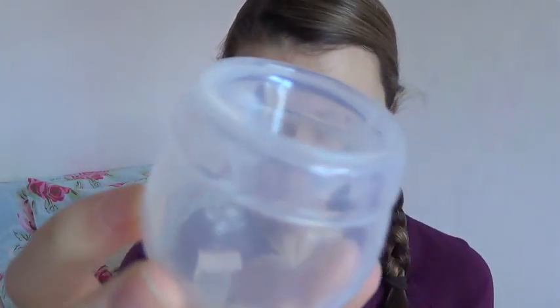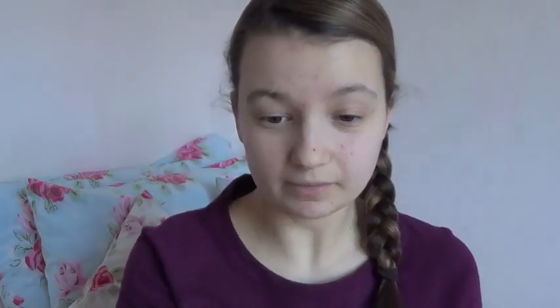You don't have to wait for this cup to pop open — it has no suction release holes around the top. It's supposed to fit no matter what shape it's in because of its unique shape; it just hugs you.